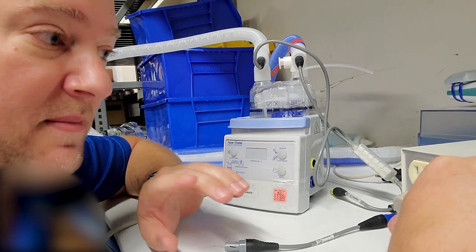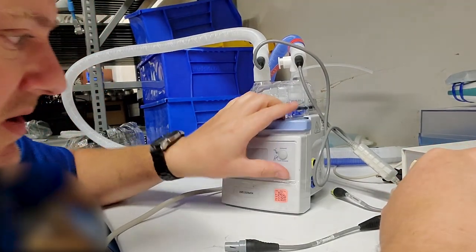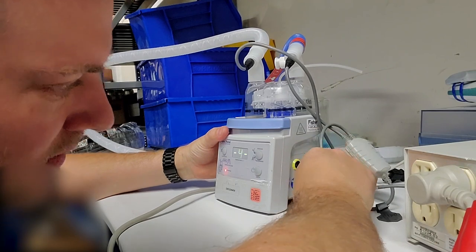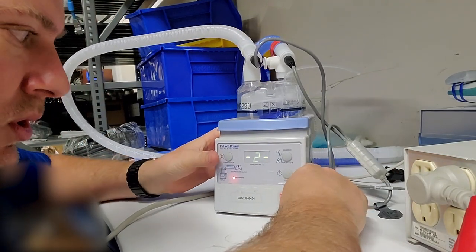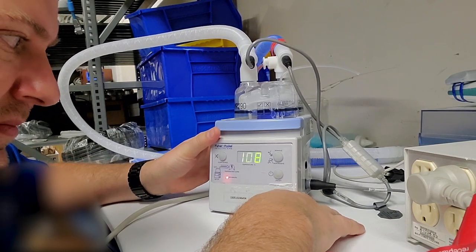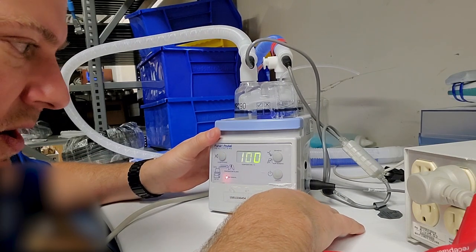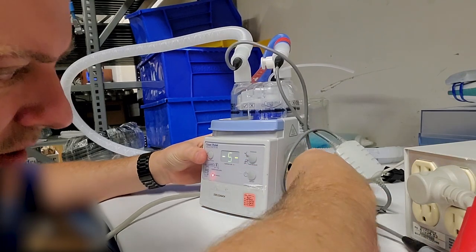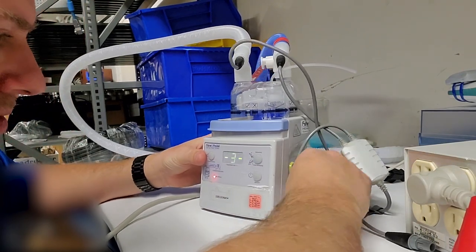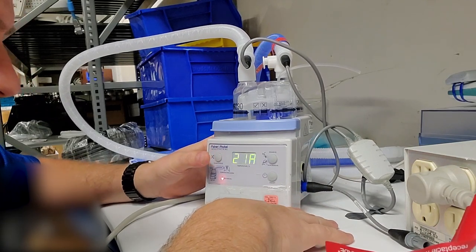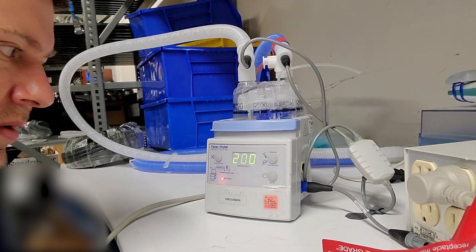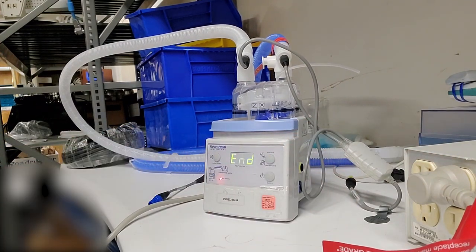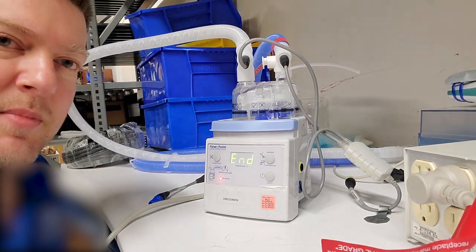All right, so I'm going to run through the calibration one more time at full speed so that you guys can really see what's going on. I'm going to hold down the power button, plug it in: six, five, four, three, two, one, activate. It's going to get to 100, hit mute. Six—I hit mute again to start the cycle again—four, three, two. And that stabilizes at 200, press mute.